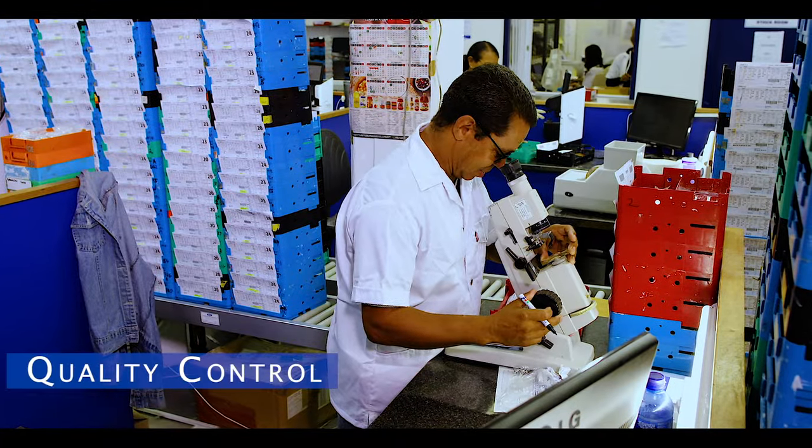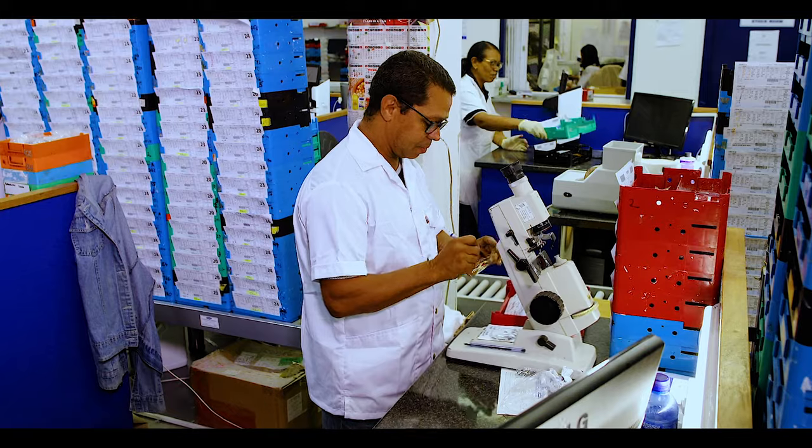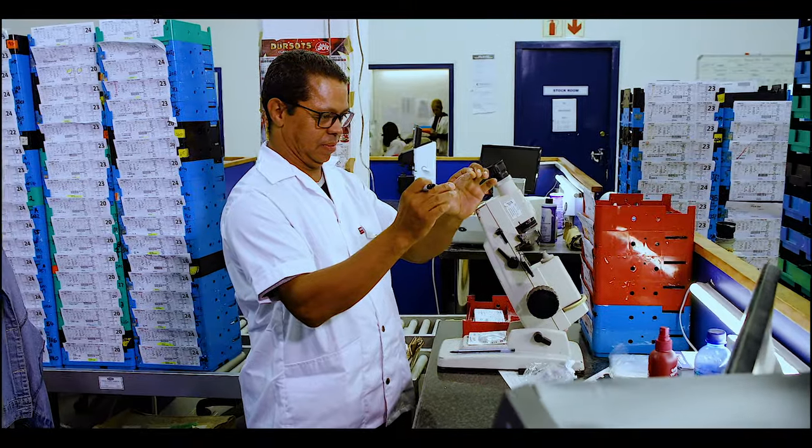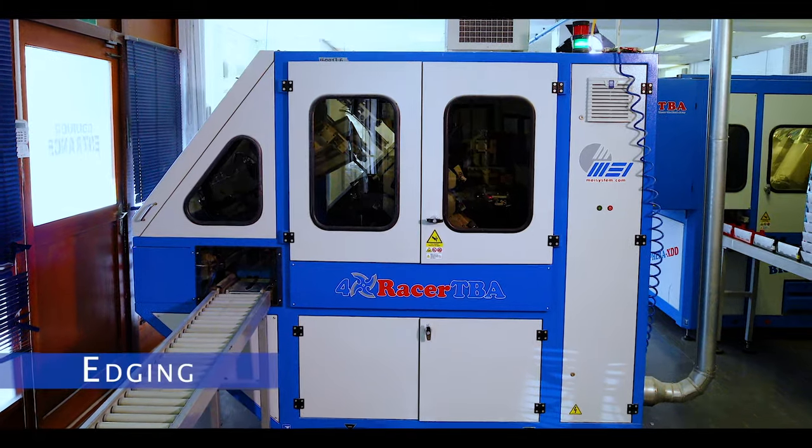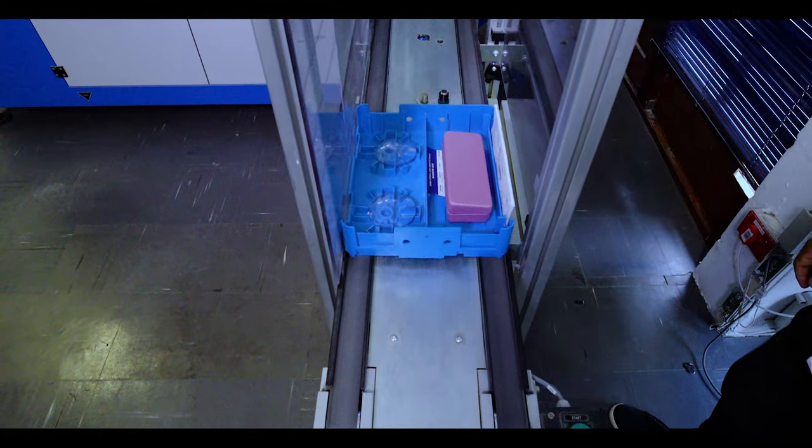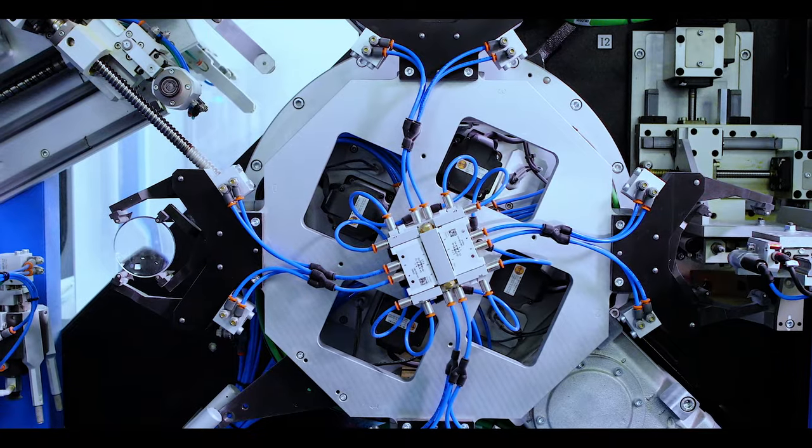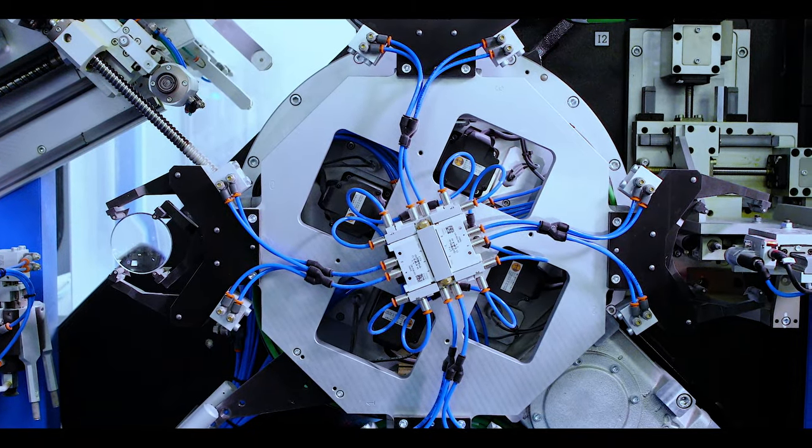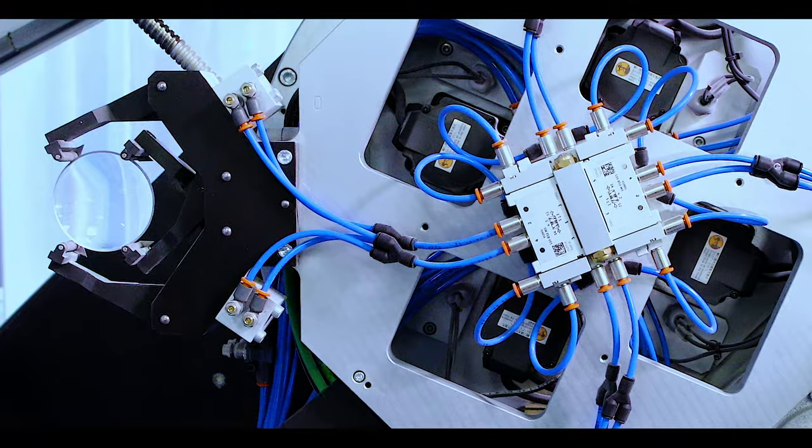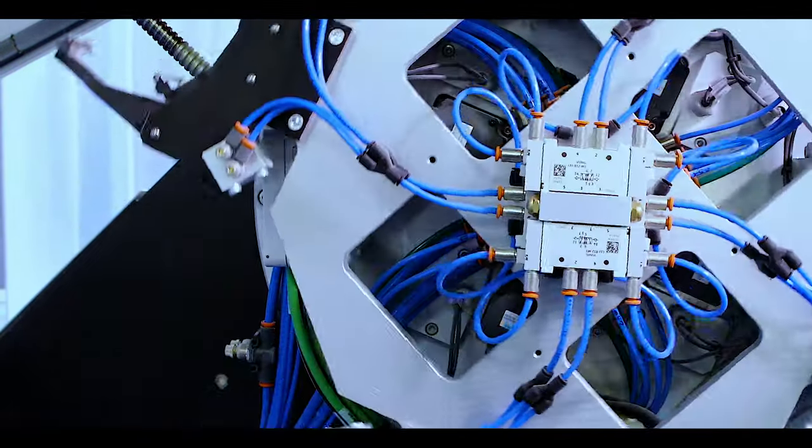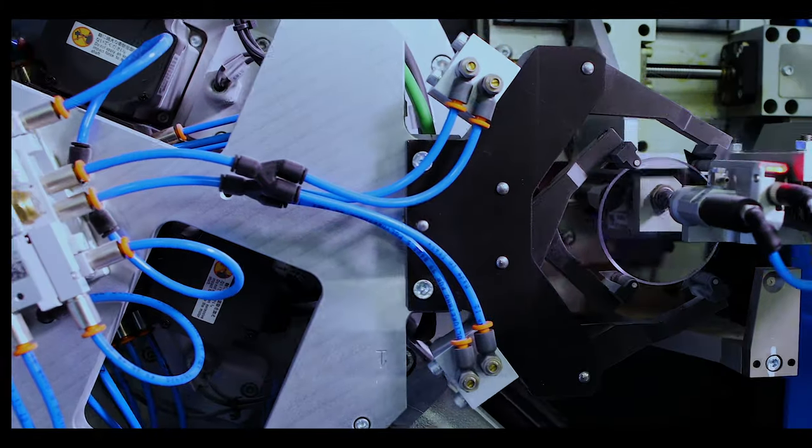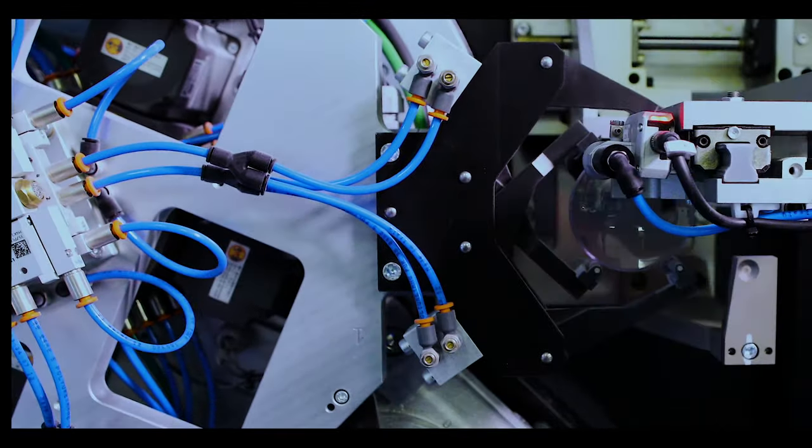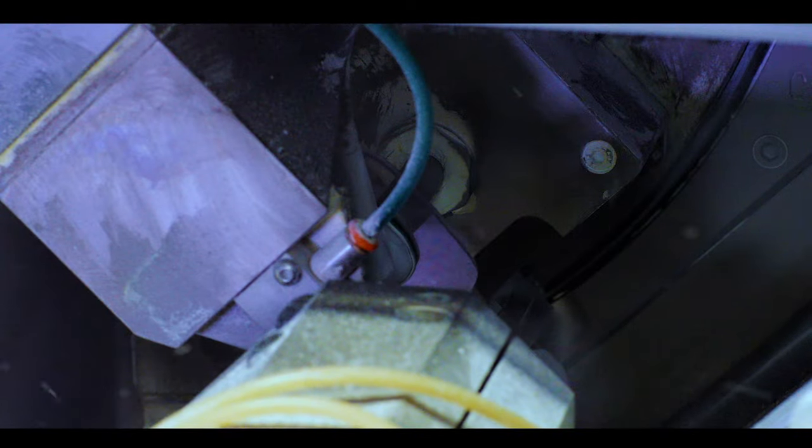Upon completion of the vacuum coating process, the lenses are inspected again. The lenses are then shaped to fit your frame. The computer that controls the edging process downloads the frame pattern information to be used. While the lens slowly turns, a fast-turning cutting surface grinds the lens to the exact shape and size specifications of the frame.